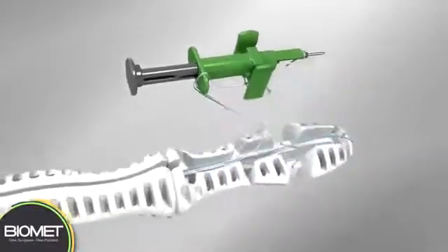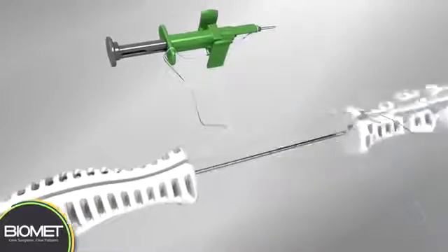Remove the noose assembly and sutures from the inserter. Then remove the anchor inserter from the guide.